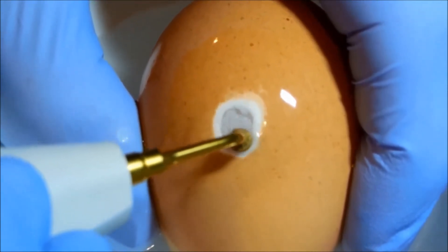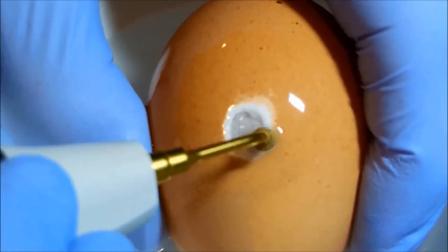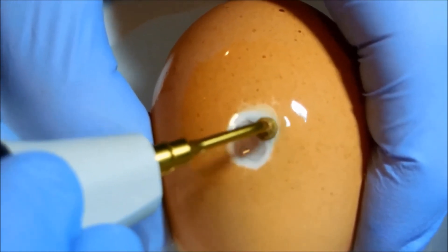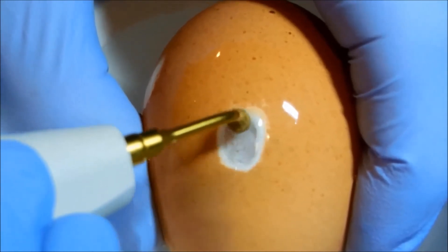Here we are. And I'm actually pushing against this. And I'm able to remove the very thin bone, which mimics the sinus.